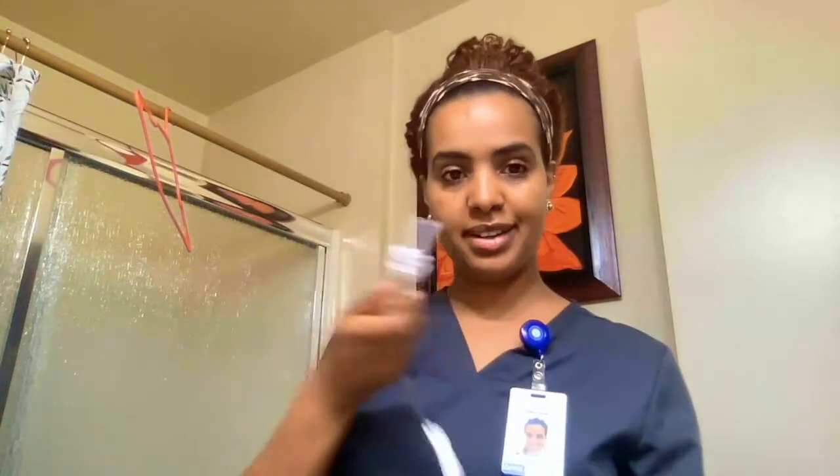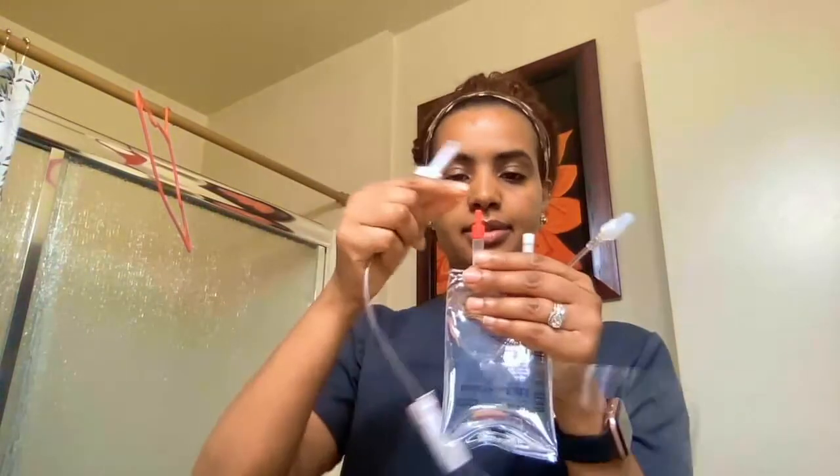I have the same spike setup with this secondary tubing, and I'm going to take the red tip out.